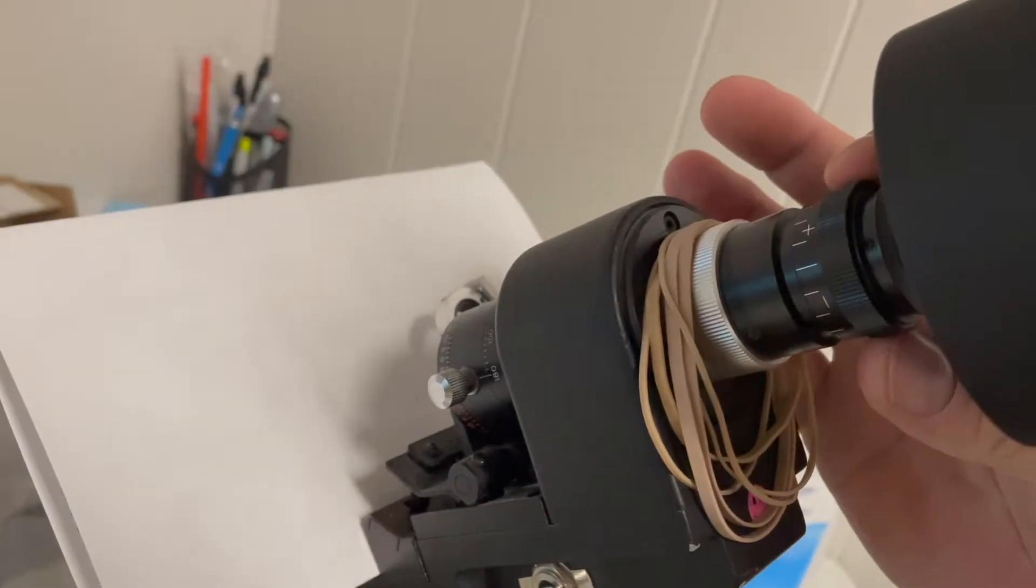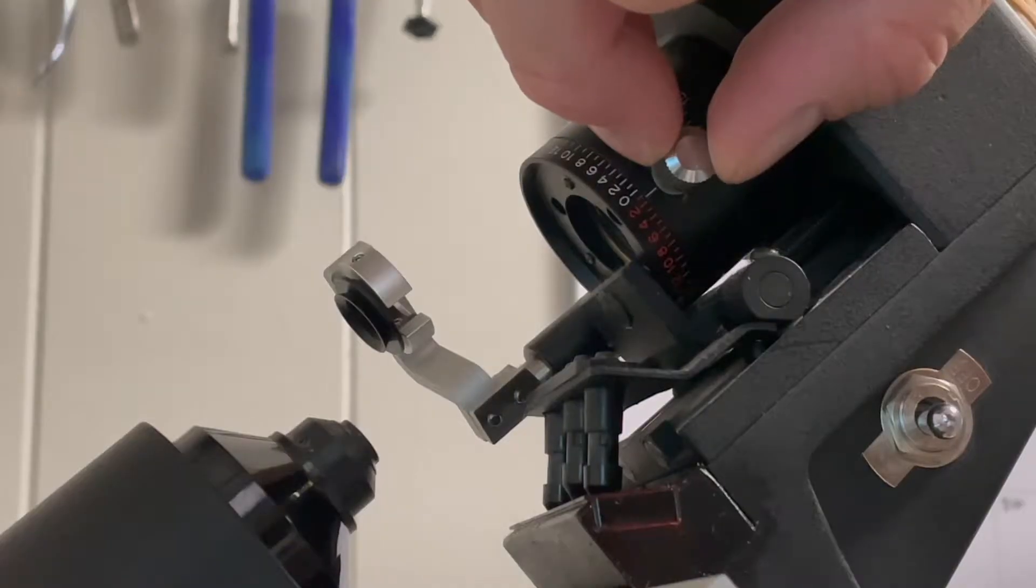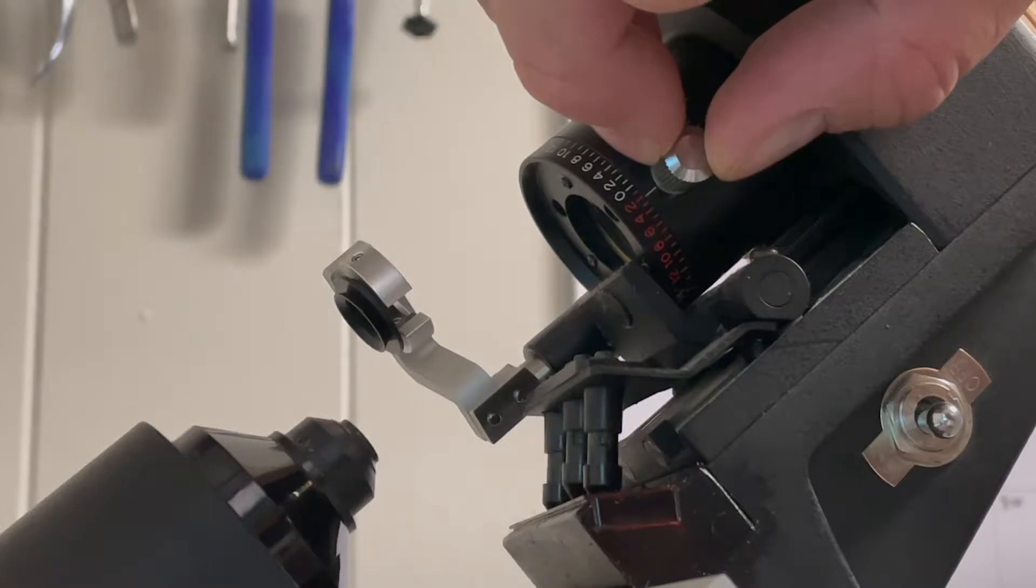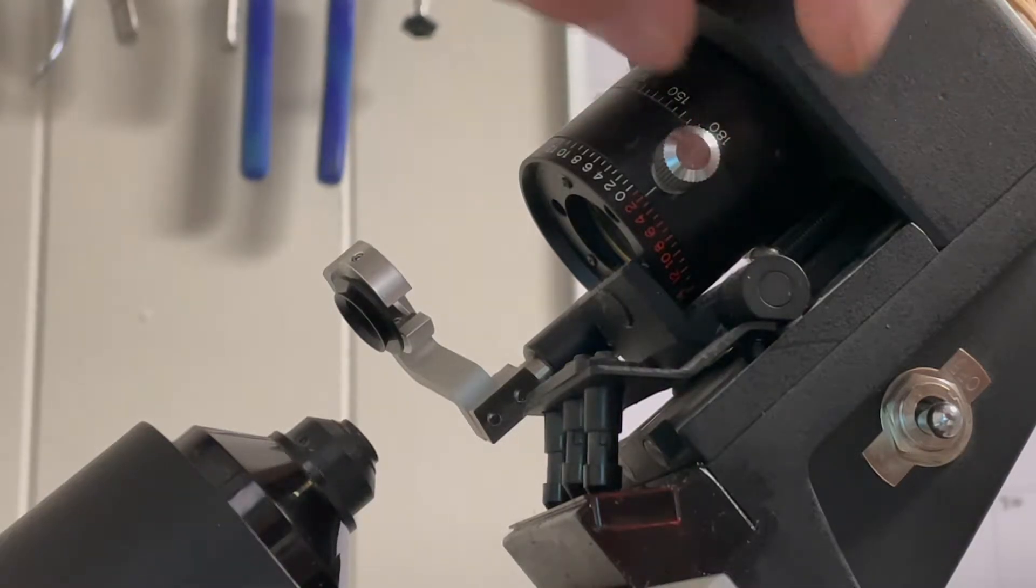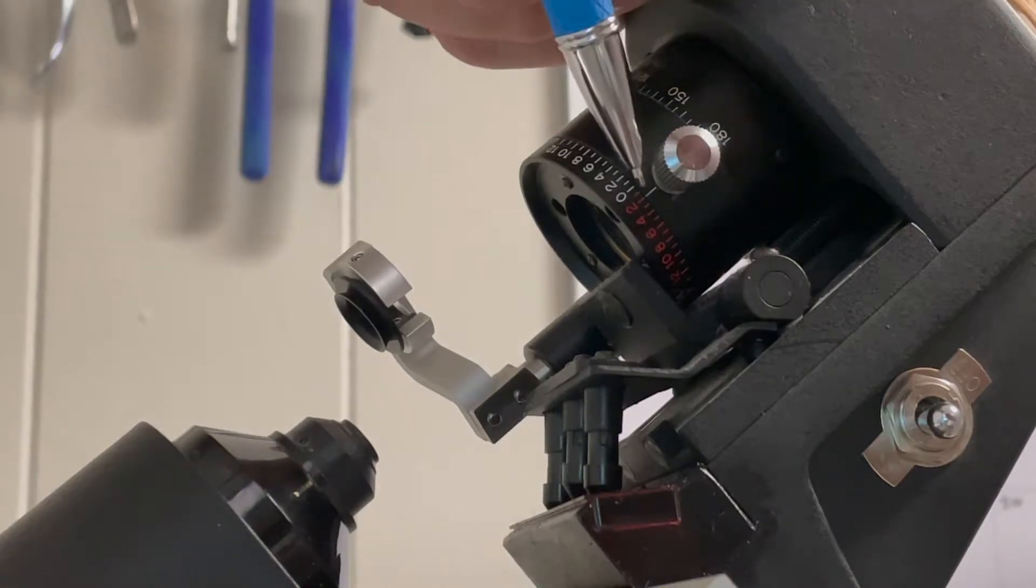From how to set the eyepiece, the different parts of the lens meter, how to spot single vision, bifocals, progressives, everything in between, all the common mistakes to avoid.